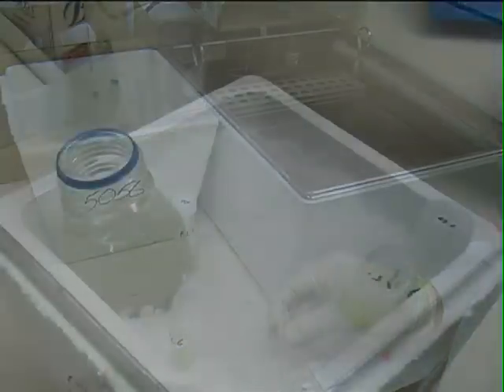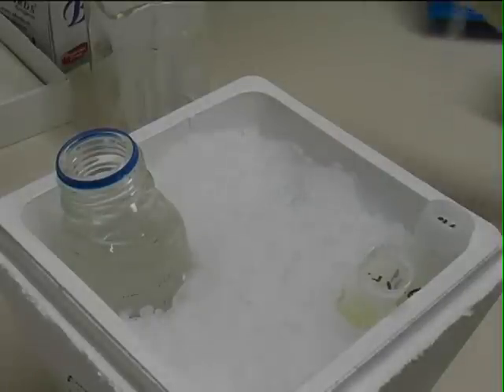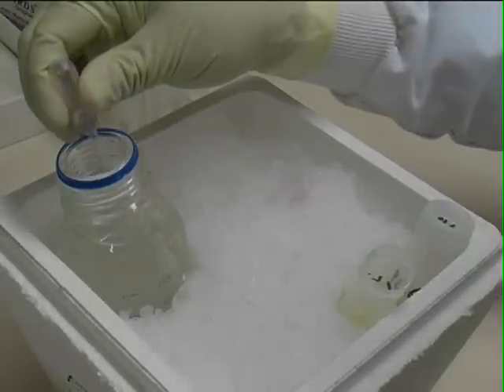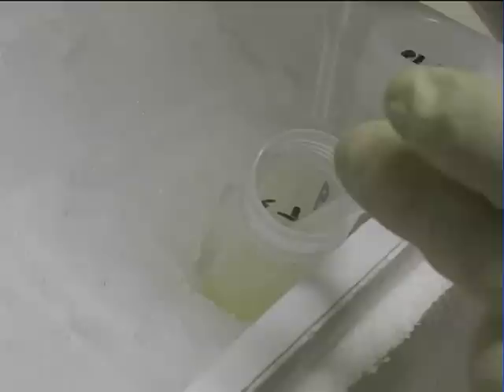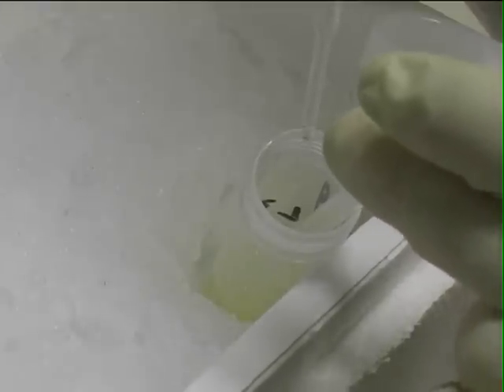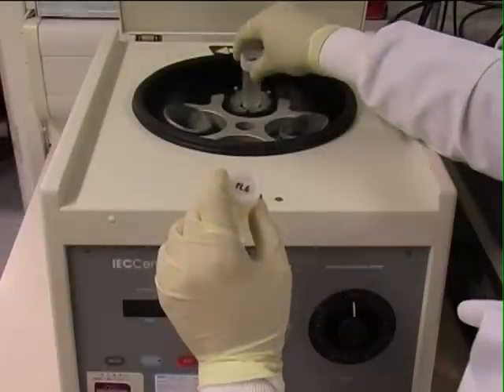After thawing at 37 degrees, the platelets need to be washed to remove DMSO and resuspended at the correct concentration. The buffer should be added dropwise and the platelets should be washed three times at this stage.